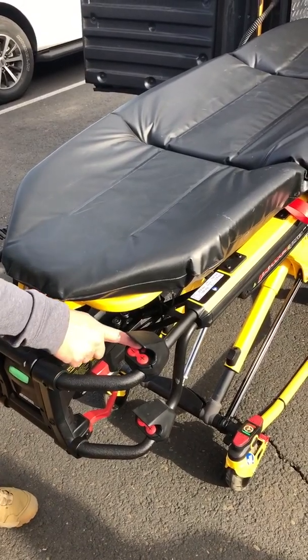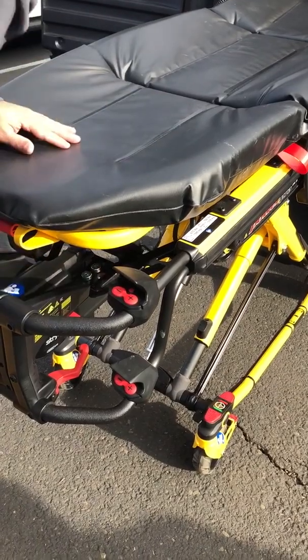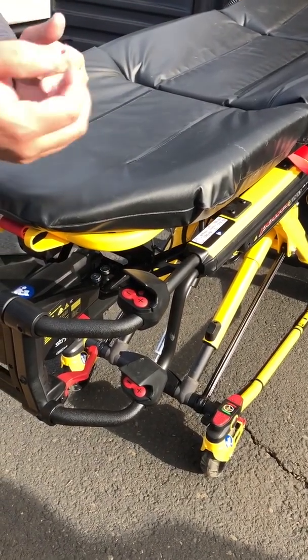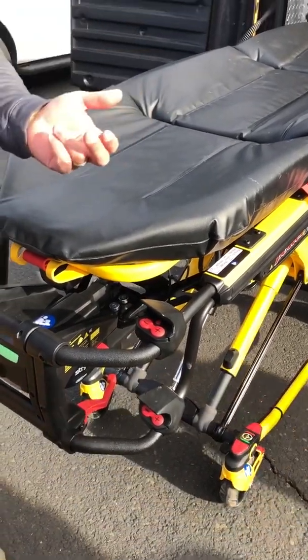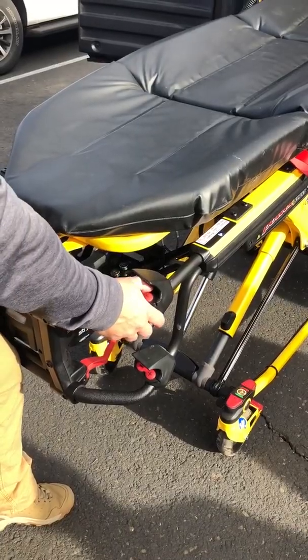That little tiny button on your gurneys all these years — this is what it does. It disconnects it from the system. That's just like a car door: if I'm pulling on the door and trying to unlock it at the same time, I'm going to have a problem. I like to push it in and shore up that gap before I then depress my button.